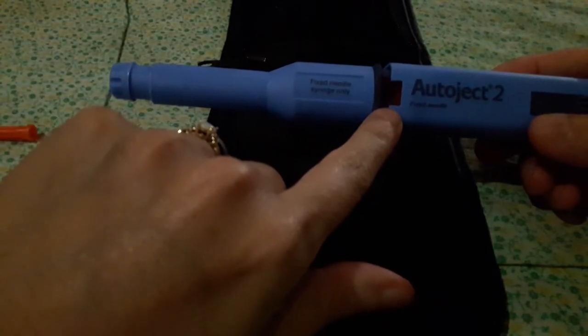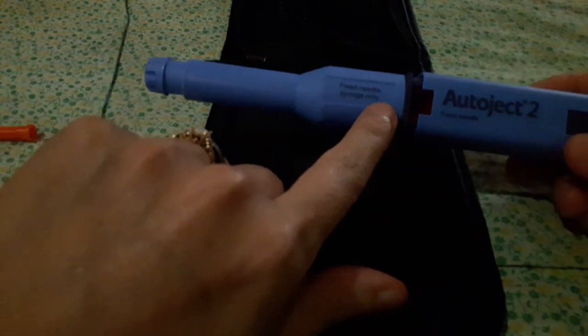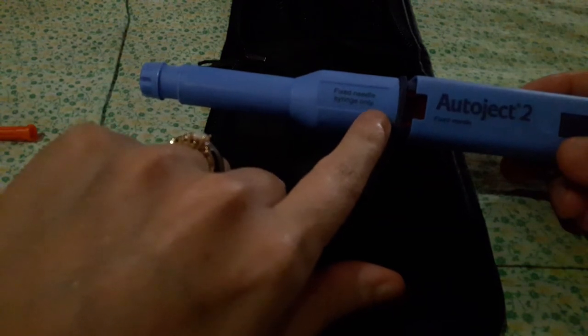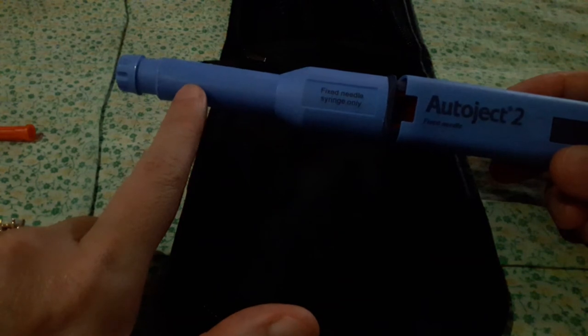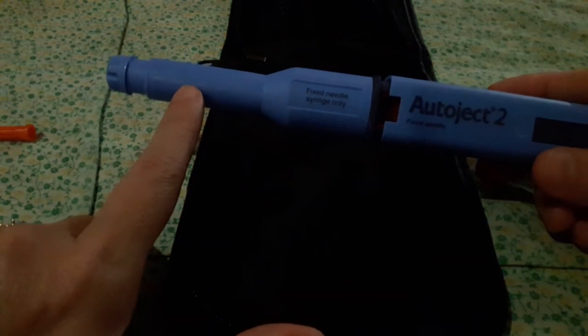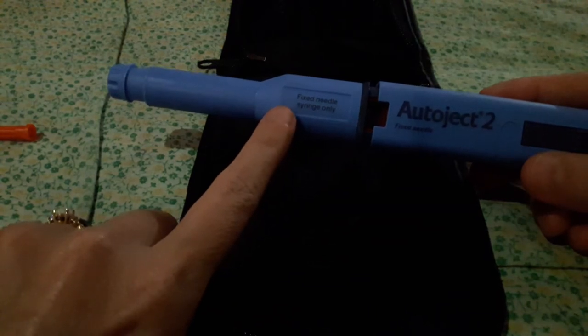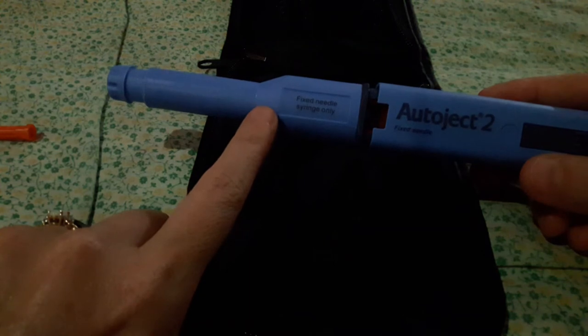And have a look here, and you'll see there's a window. And this window is really important because it's going to show you when the syringe is completely empty. So in the beginning, what I found worked best was to test this on a toilet paper roll or a stuffed animal or something, bearing in mind that the chamber is going to empty very slowly into your dog's skin. It's not going to be quick like it is in a toilet roll.